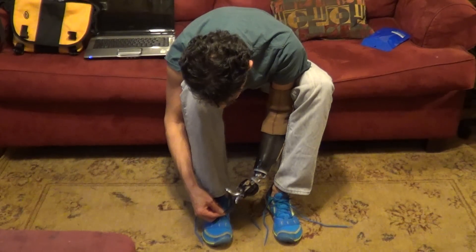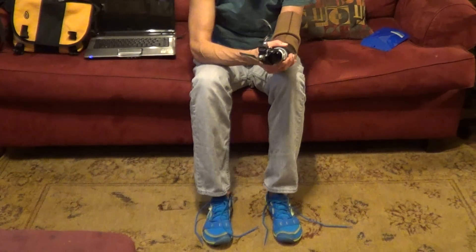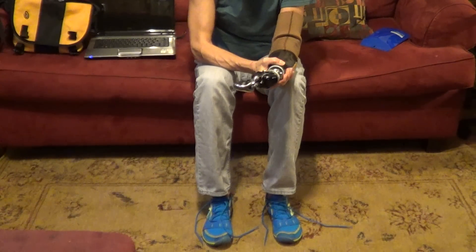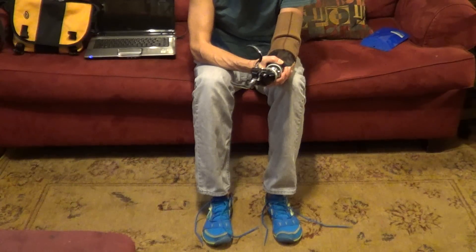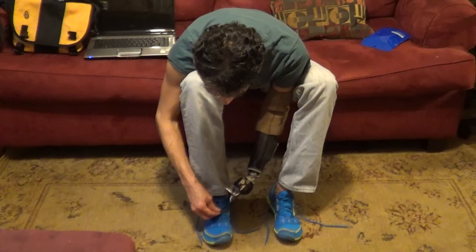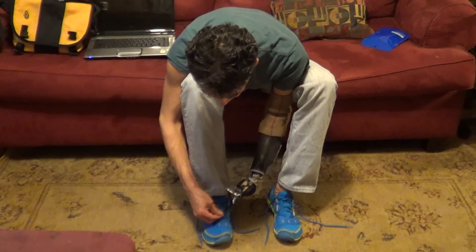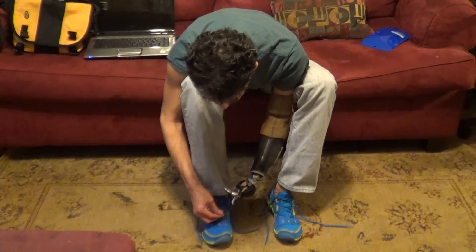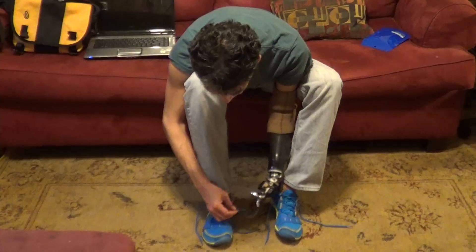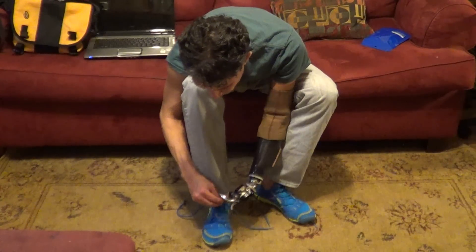Okay, relax. Close. Wait a minute, what's going on here? Open, close, open, close, open, close. It would make me so happy if I could do this. Close. Patience. Close. I just want y'all to see how frustrating this is for me and how I'm trying to learn.